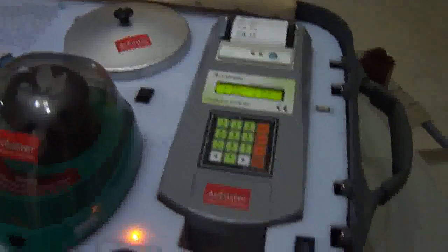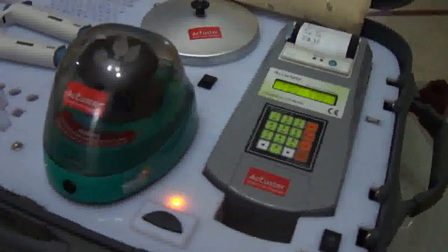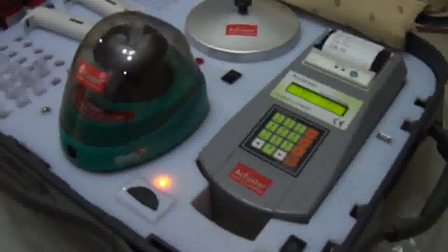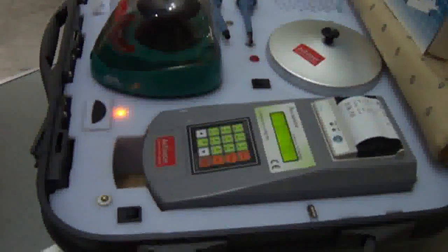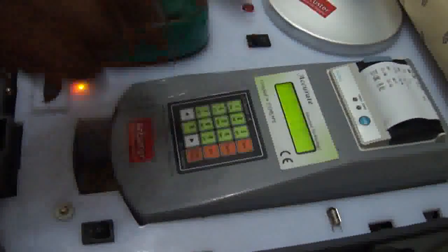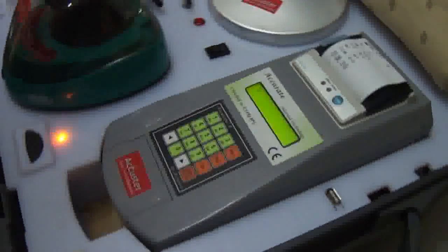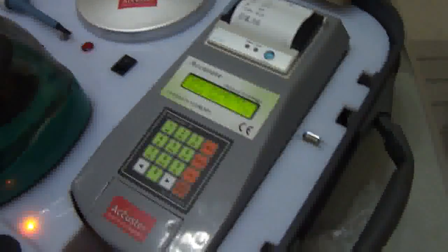You can now perform the test like this. It is very easy to use — only two steps are needed to perform a test. For glucose, you just need to press one. Now you are in the glucose test and ready to perform.